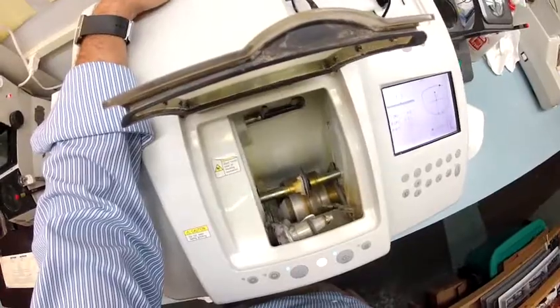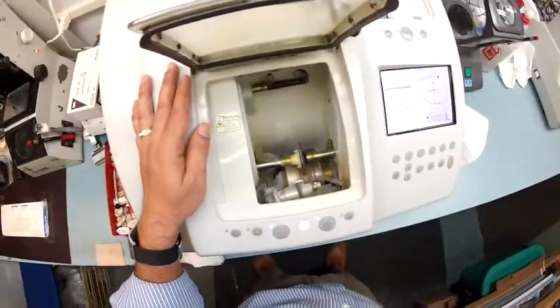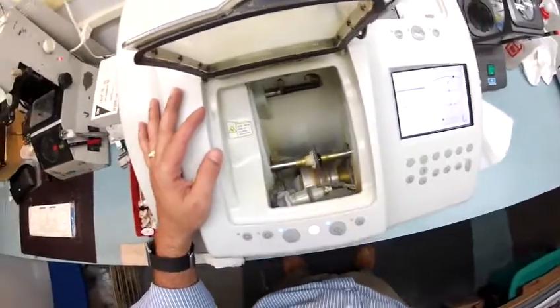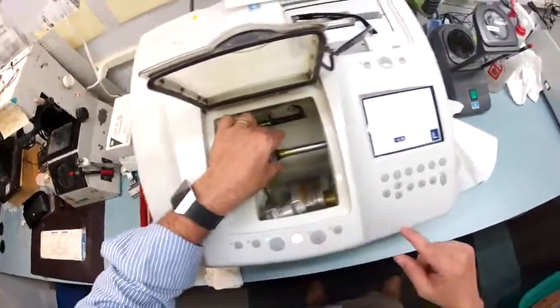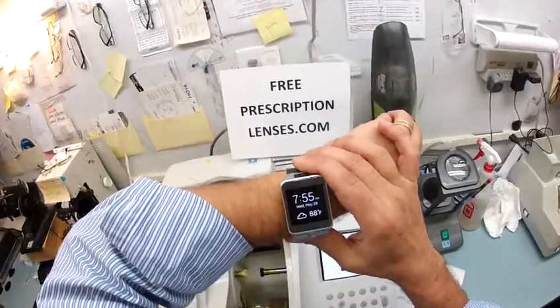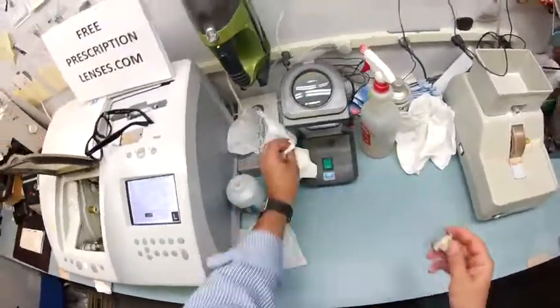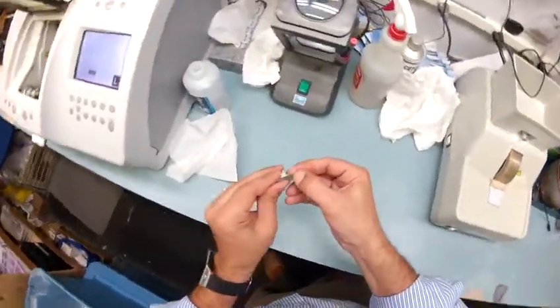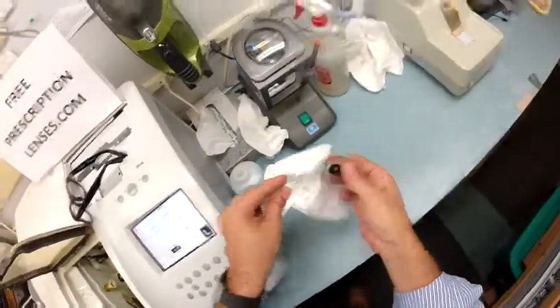As soon as we get the left lens mounted, I'm going to show you how your lenses turn from light to dark and then back to clear again. I'm almost positive no other seller on the internet lets you watch your glasses being made, but my prescription patients love watching me make their glasses. This whole process takes about 20 minutes. It is now 7:55 on Wednesday, May 28th — 88 degrees in my hometown of Durham, North Carolina, halfway between Atlanta and Washington DC. Back to the hand stone, back to the safety bevel, back to my thumbnail scraping that off. Collect it all — this time behind the back!